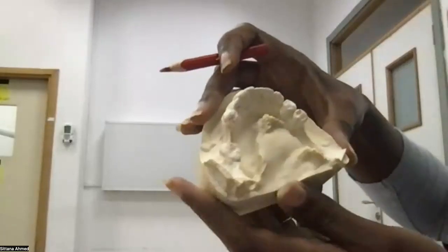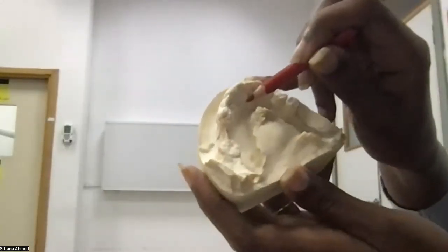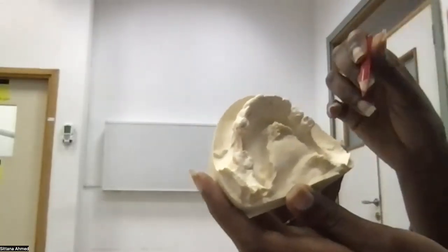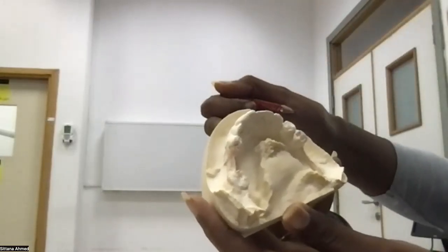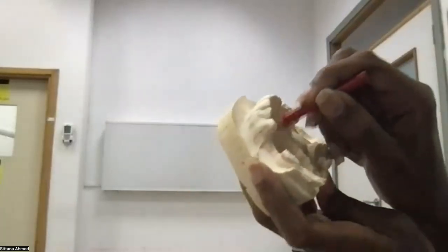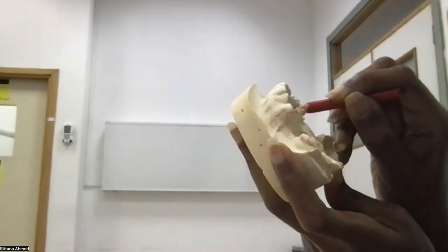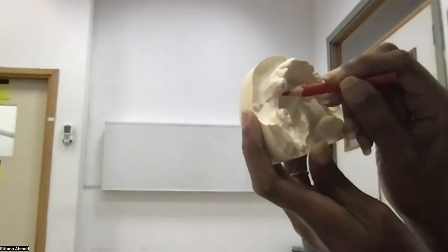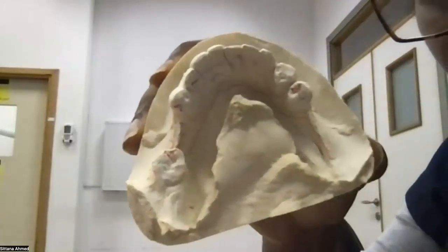What comes after that is the lingual or the major connector. If the space here looks very small, less than 7 millimeters, what should I put instead? We will put a lingual plate, the second most common. So I will draw my lingual plate, and then I will draw all of them. So this is my lingual plate. And then I will just connect anything with a minor connector, and I'm done with my design. So this is the design.